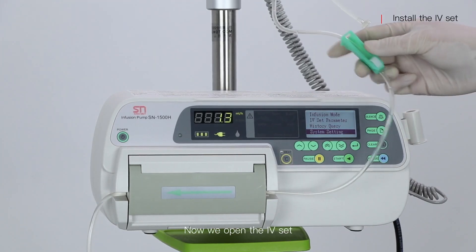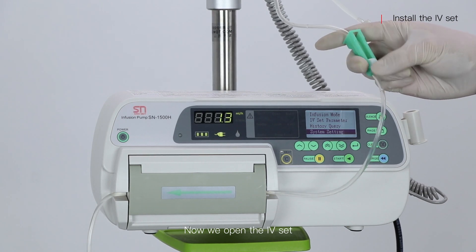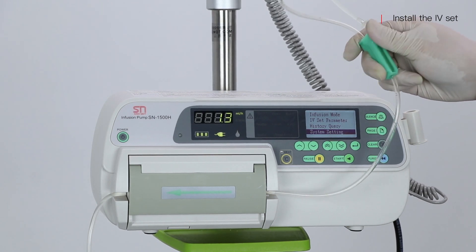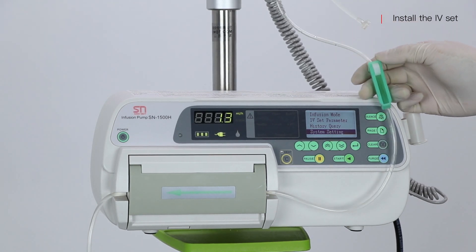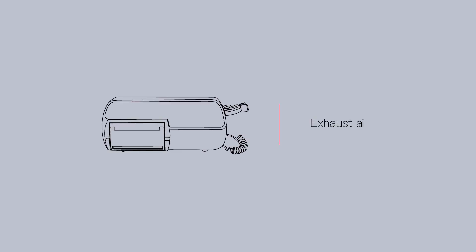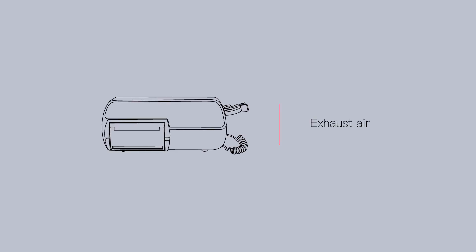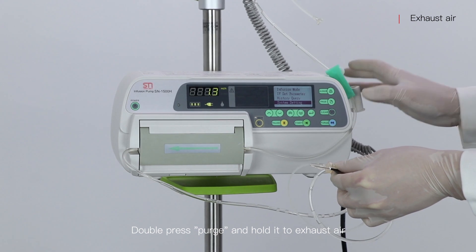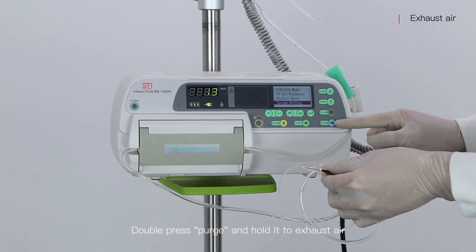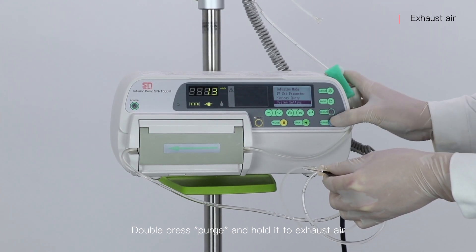Now we open the IV set. Double press and hold to exhaust the air.